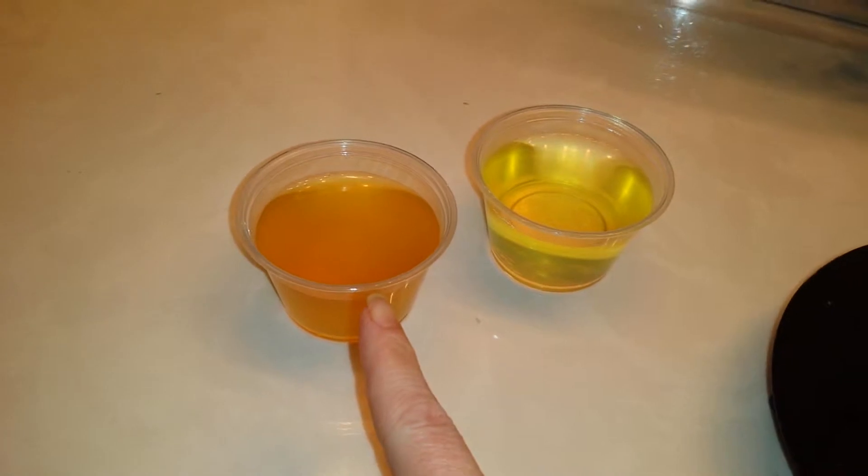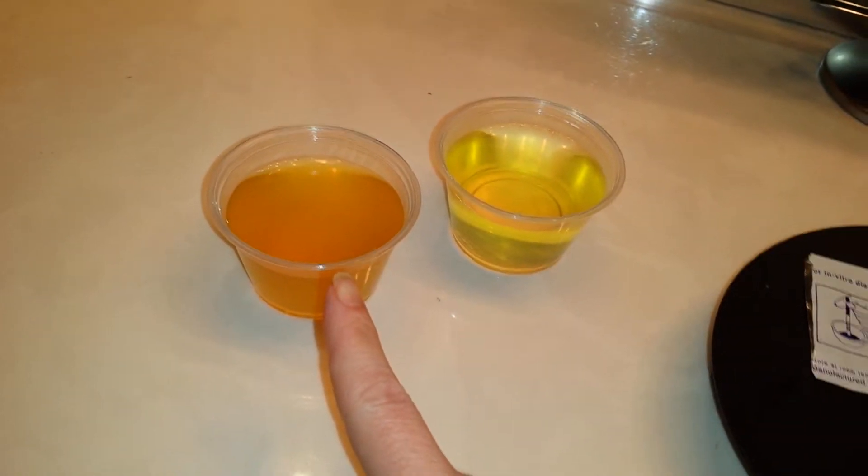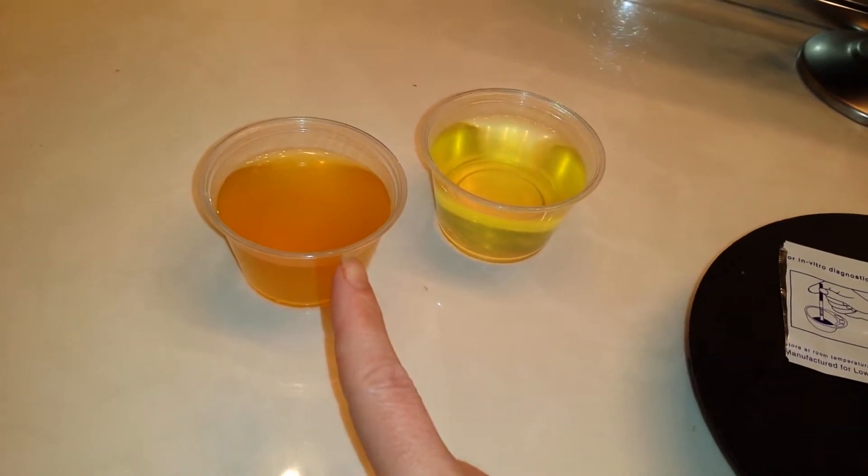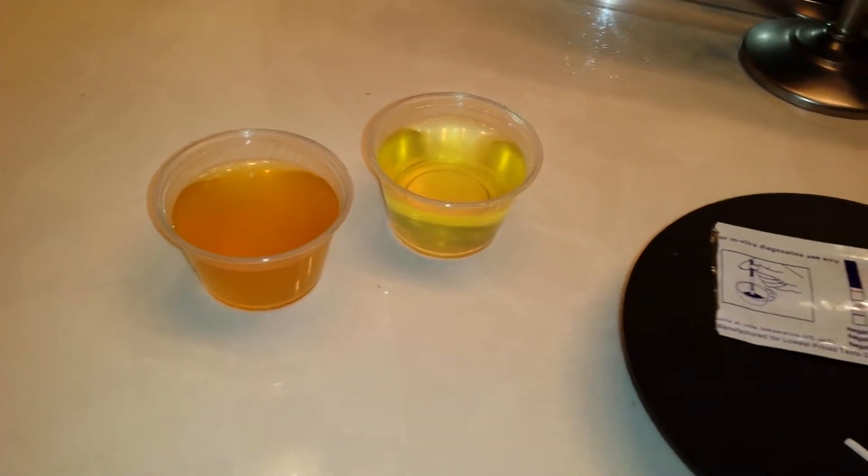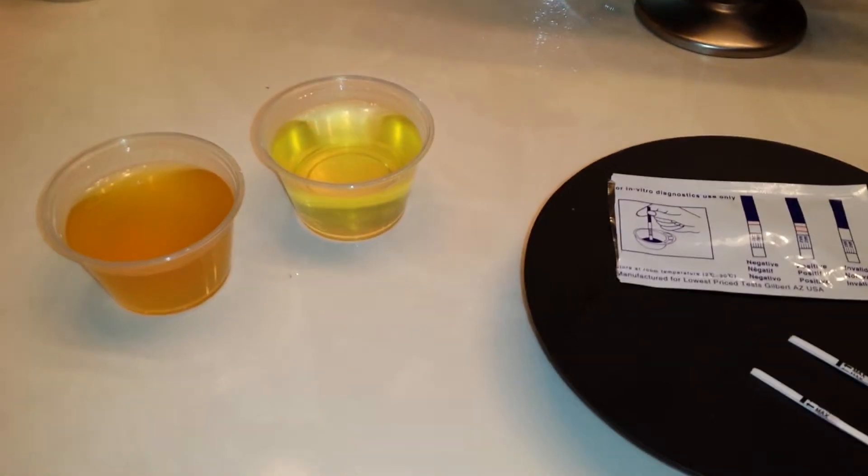Now this sample right here was held from about 10:30 a.m. till about 2:30 p.m. and I abstained from beverages and coffee, tea, soda.